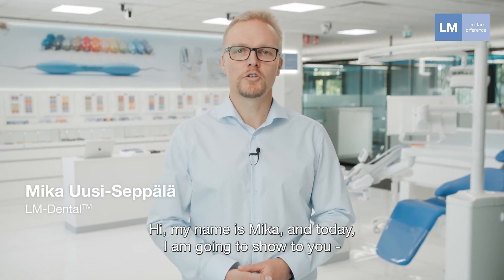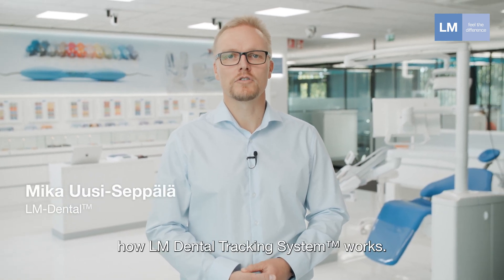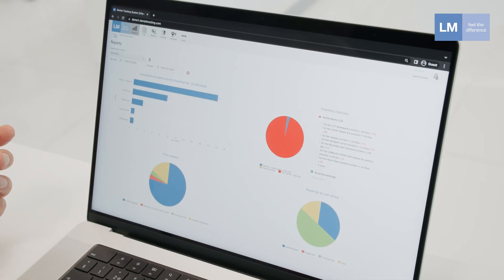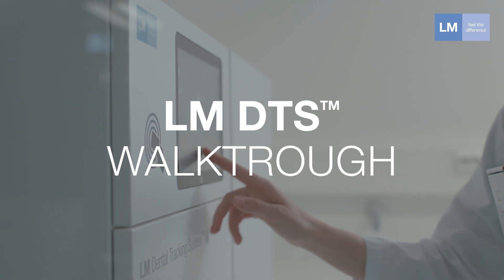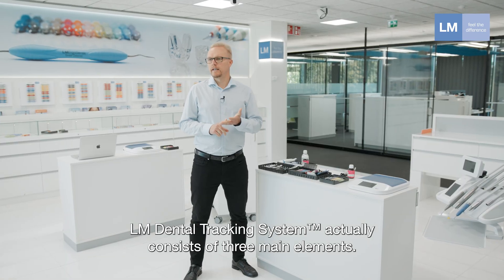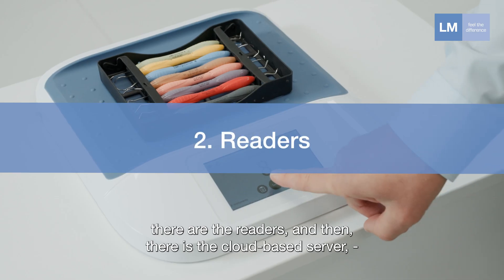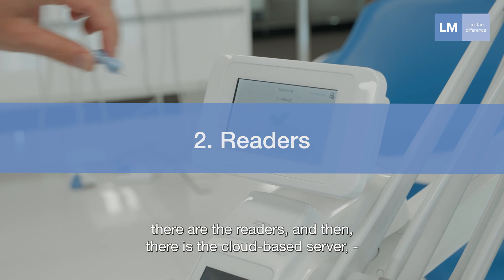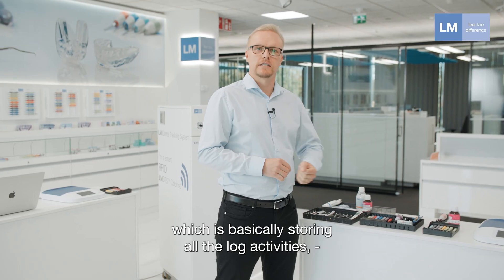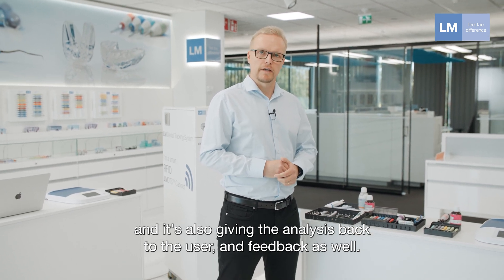Hi, my name is Mika and today I'm going to show you how LM Dental Tracking System works. The Dental Tracking System consists of three main elements: the materials, the readers, and the cloud-based server which stores all the log activities and provides analyses and feedback back to the users.